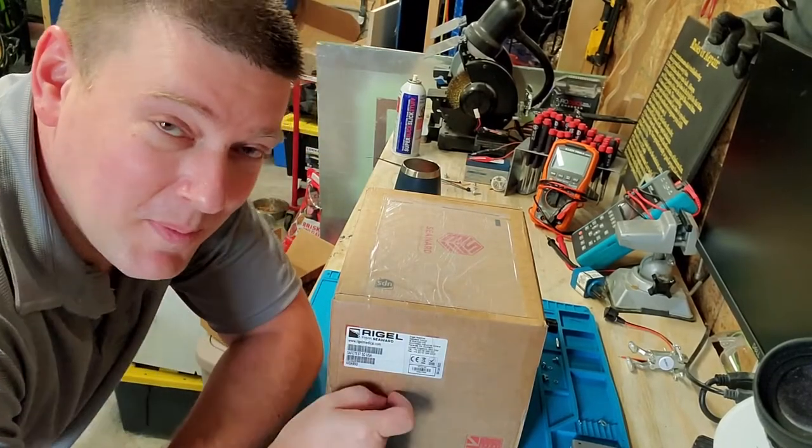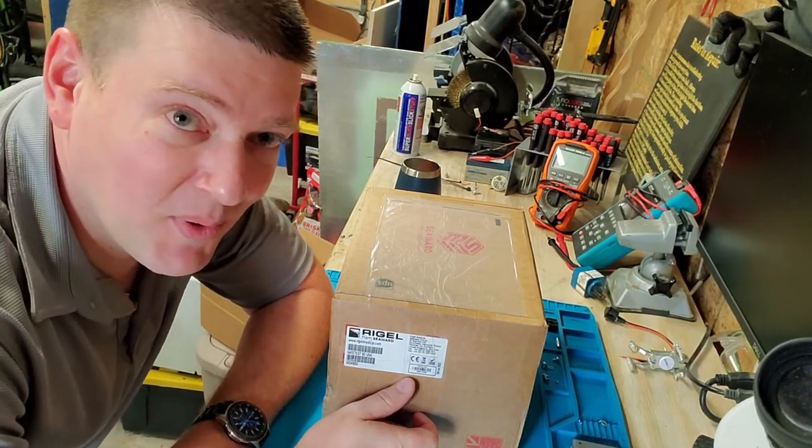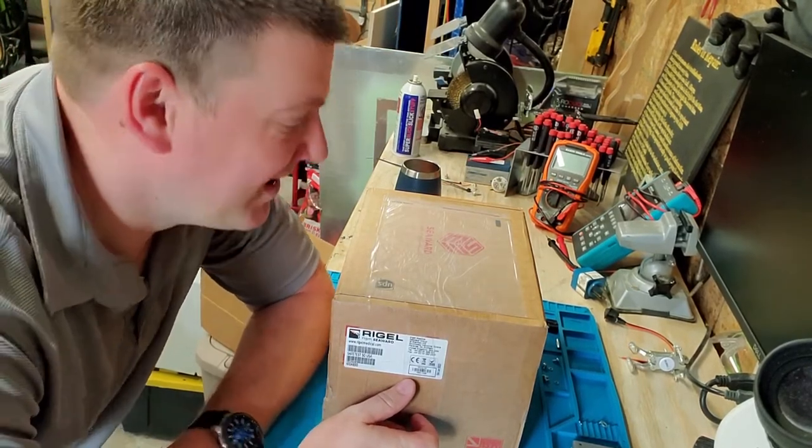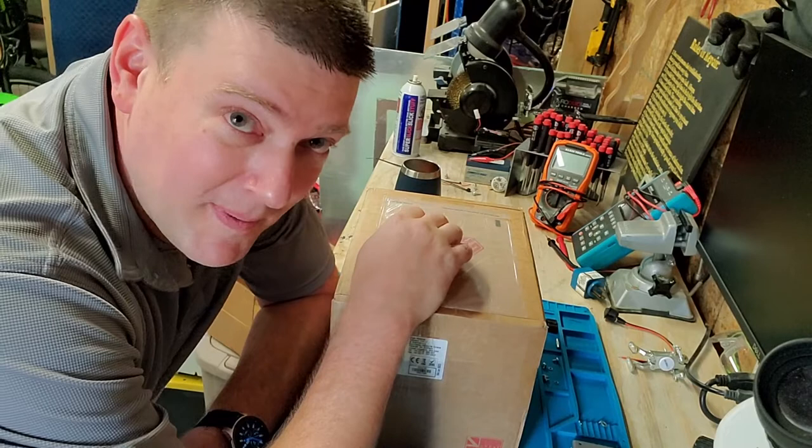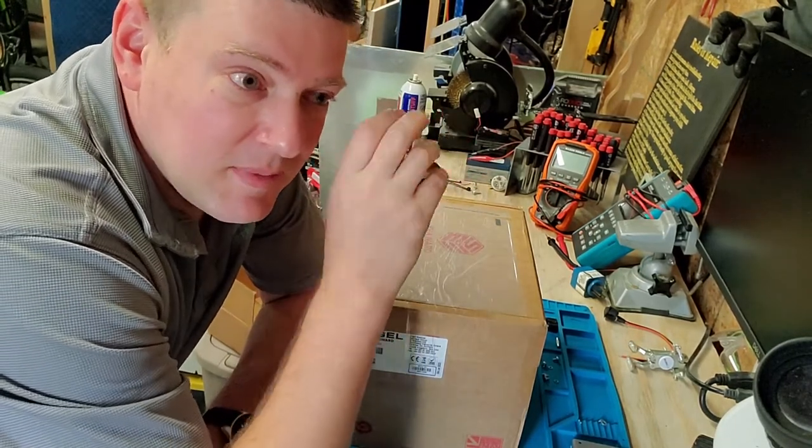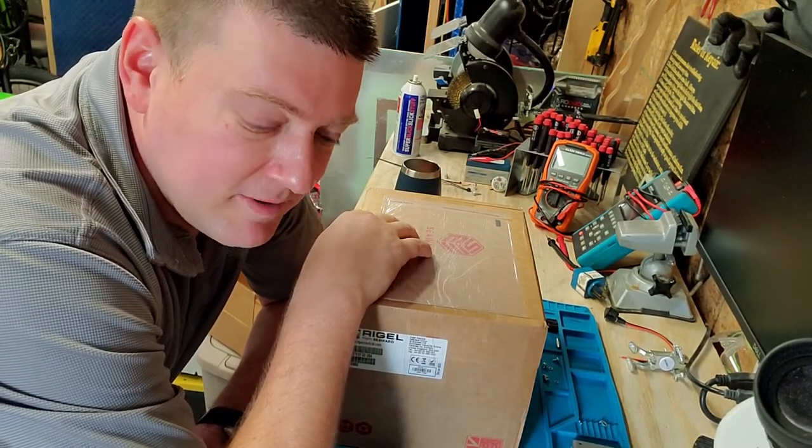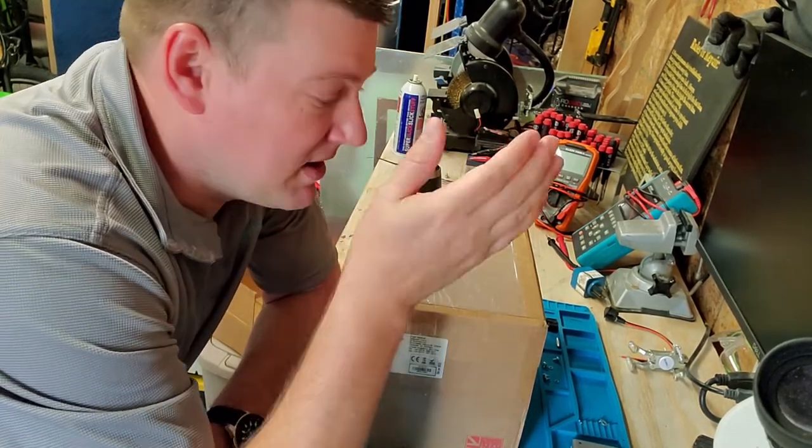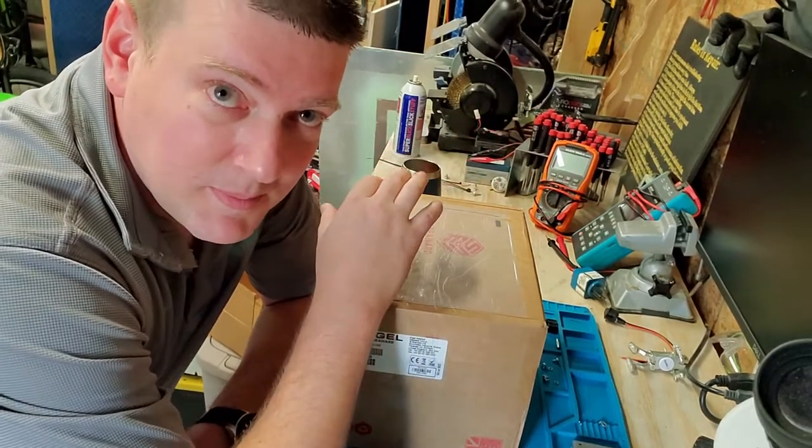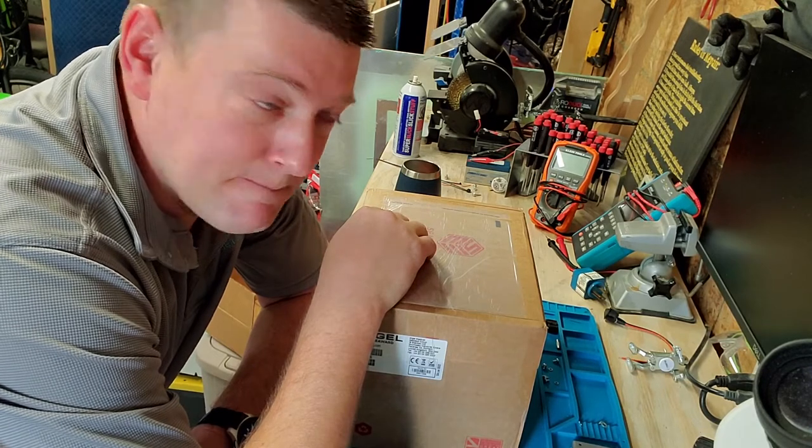Hey guys, welcome back to Better Biomed. I came home from work today and this guy was sitting on my porch. I am so excited. The guys over at Argo Biomedical contacted me when I was in South Carolina at the biomed event, and they told me they want to send me a mystery box to check it out and see what I think.